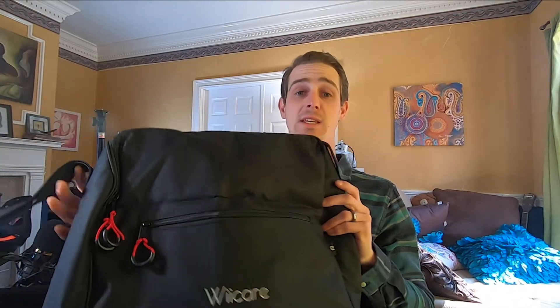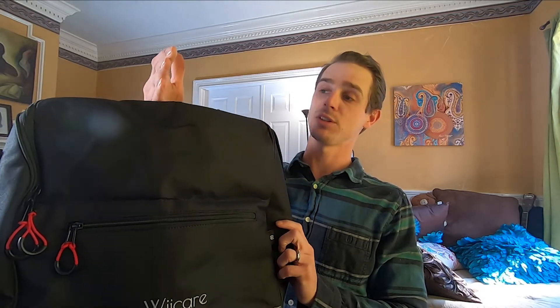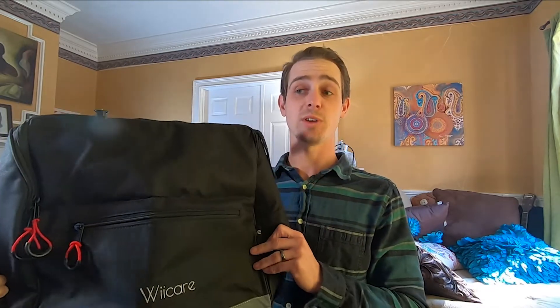There's really only one thing I don't particularly like about this bag, and that's how big it is. When you saw me put it on the back of my chair, it folded kind of in half. I'd like to see them offer an option that's about half or three-quarters the width, so it fits better on my chair. This would be great for a standard fold-up wheelchair or someone with a much wider chair. My chair is very narrow — only about 13 to 14 inches from handle to handle — while this bag is probably closer to 18 to 20 inches wide.